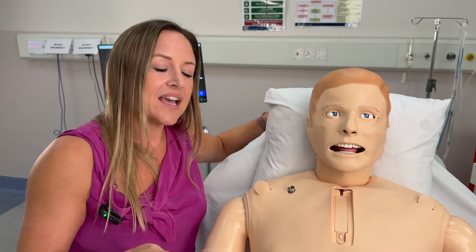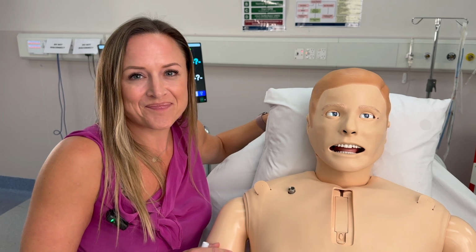So that brings us to the end of Frank's capabilities. I hope that you have found this useful in understanding the functions and capabilities of SimMan 3G. The Sim Centre team and Frank hope you enjoy your simulation.